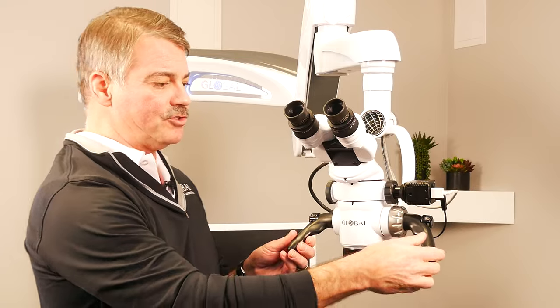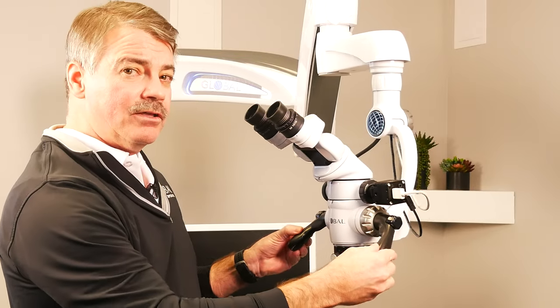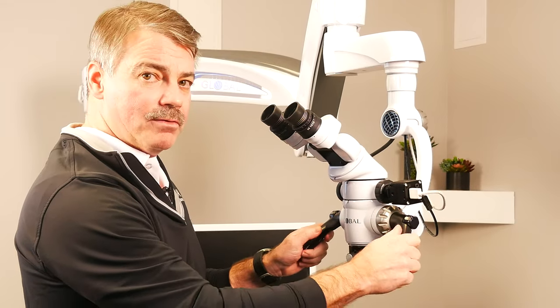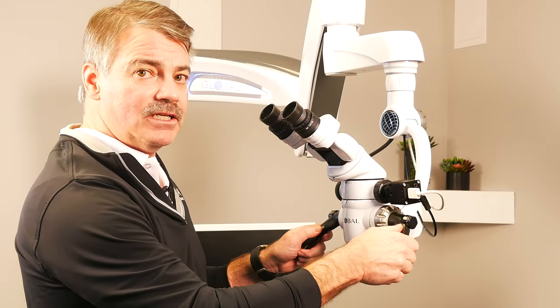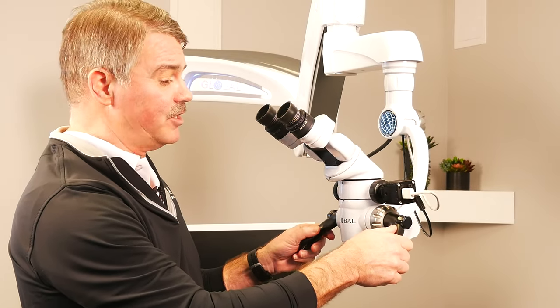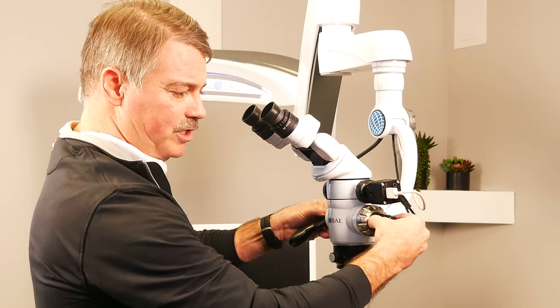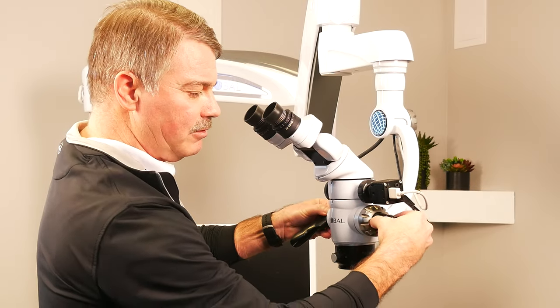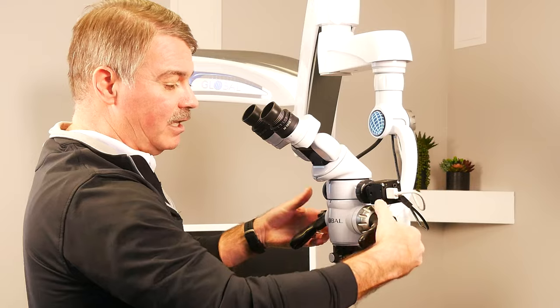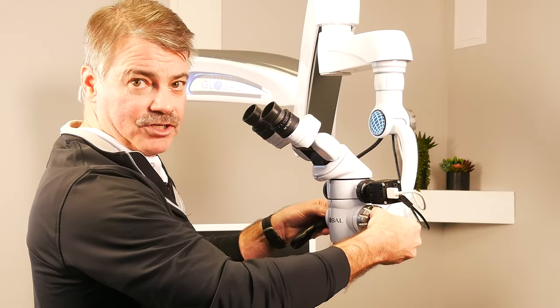The handles themselves can articulate and rotate around. They're intentionally not easy to move, so the operator isn't thrown off by accidentally changing positions. You're required to push in on the handle and then rotate it into the desired position, and it locks in automatically once it's positioned.